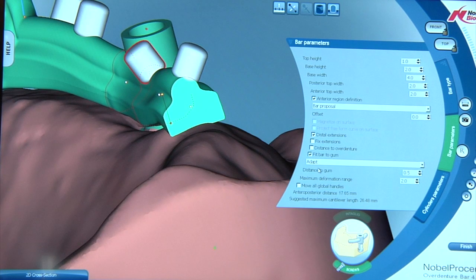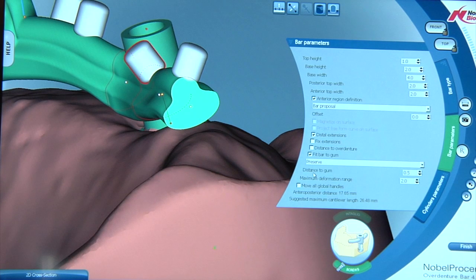Now if we want to keep convexity and natural cleansing to the bar, all we do is we come back now, we hit the drop-down menu and we change it to what's known as preserve. This is what everybody's been waiting for and now the bar has taken itself and it's changed its contours and it's taken the closest point to the ridge and it's made everything convex now.